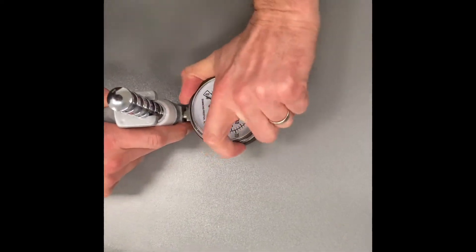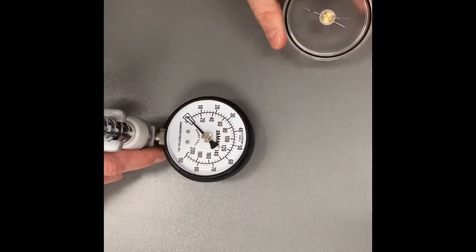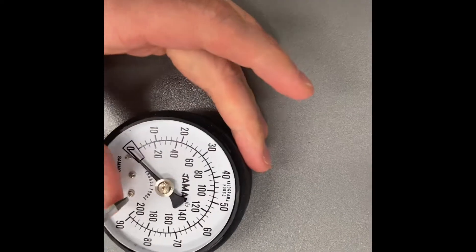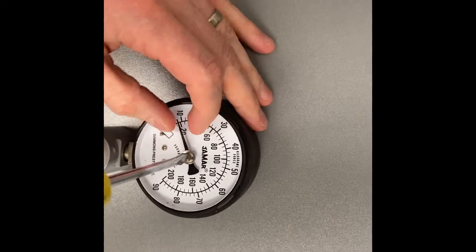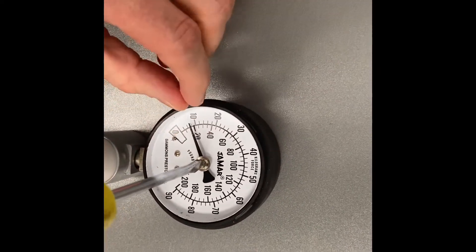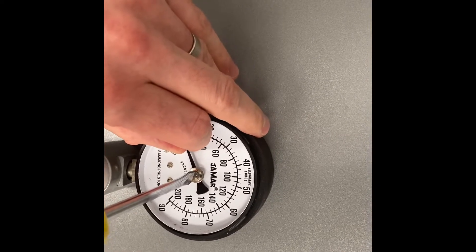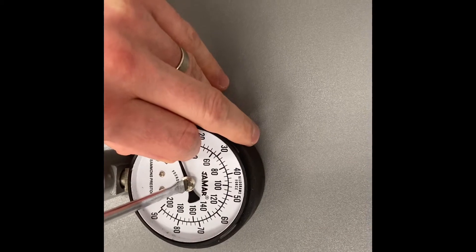Simply remove the front plate here. So there's a little screw right at the front there, just a little flat head screw at the top, so you can stabilize the actual needle and put pressure down onto the screw and then just literally rotating that counterclockwise slightly.